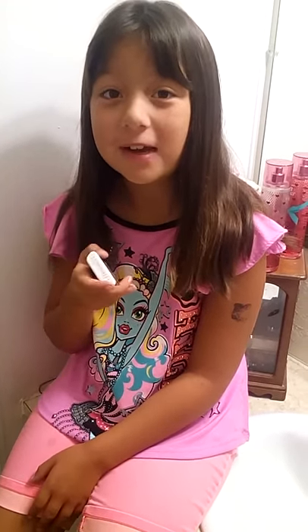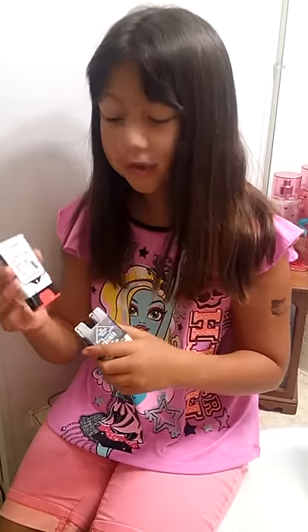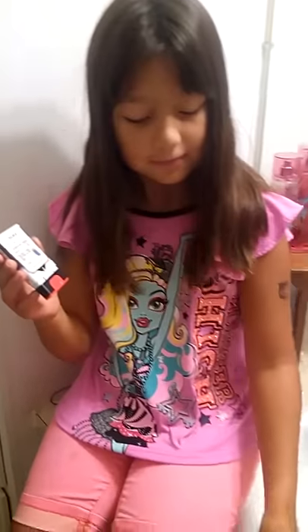Hi, I'm Bailey and I thought you'd like to see how to use my new cool electronic EpiPen. This is the trainer. So you just pull off this gray case and pop. This trainer contains no needle or drug.